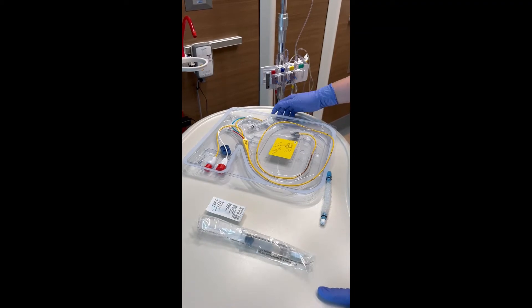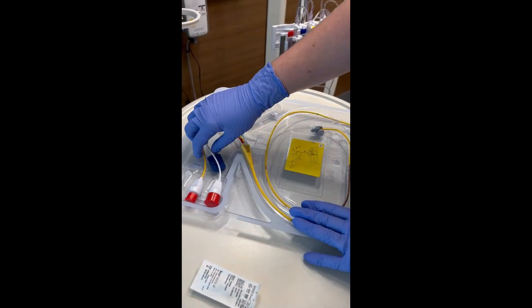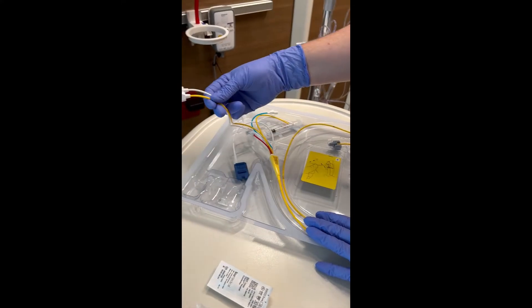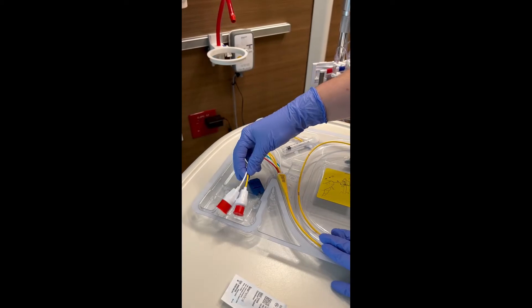So here we're going to talk about our Swan. It's got several different ports, this white one and the yellow one with the cap. These are actually going to plug into your cardiac output cable to give you measurements.